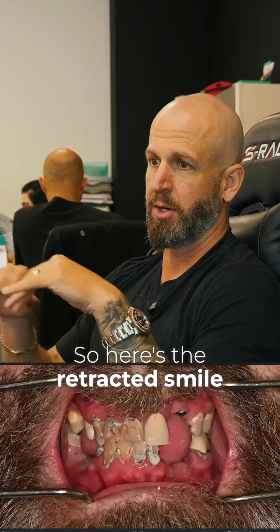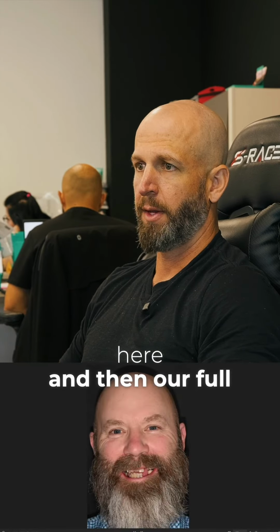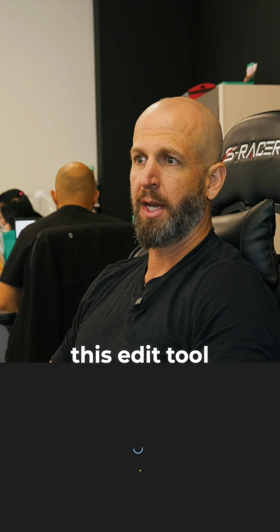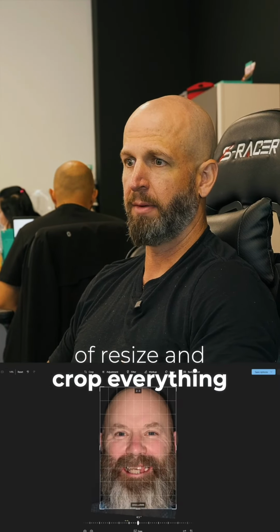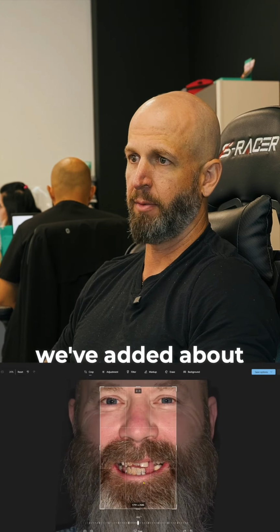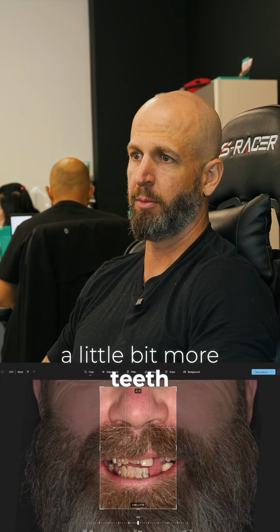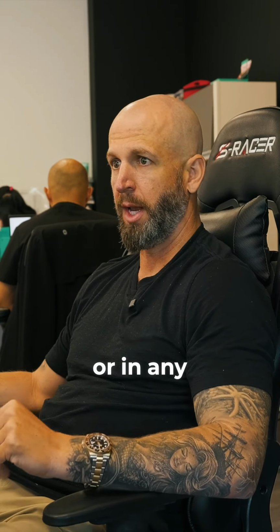So here's the retracted smile, and then we also have a full smile here. Come in here in this edit tool, and then you can resize and crop everything. So we've added, like I said previously, about 1.3 to 1.5 millimeters of length in the design. We wanted to show a little bit more teeth, but photos are very important in the treatment planning of these full arch cases or in any cosmetic treatment plan.